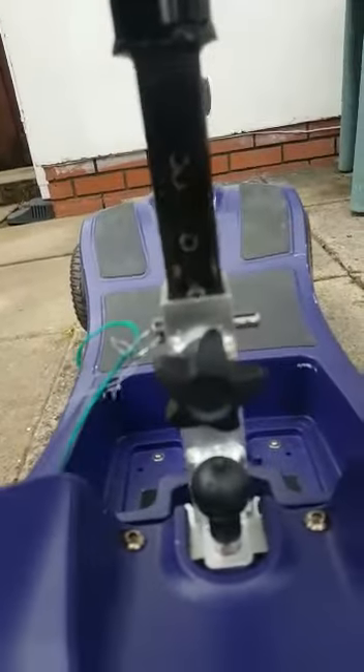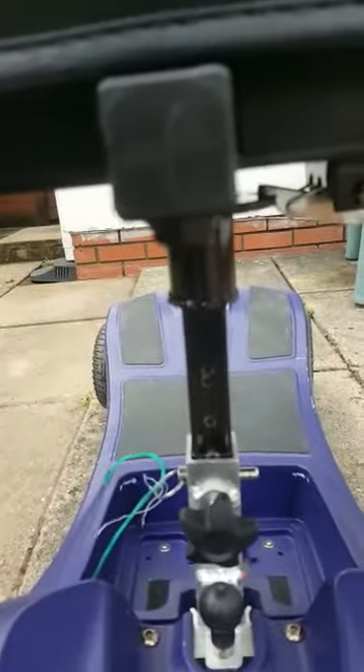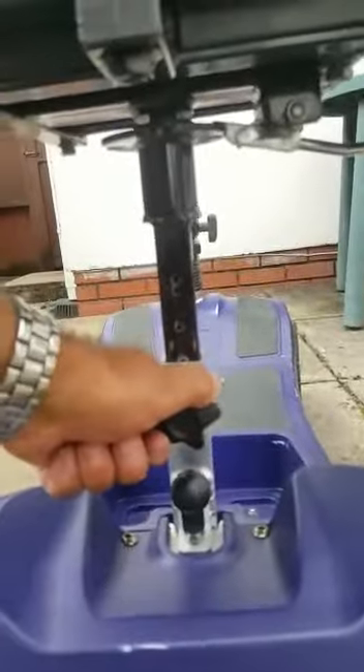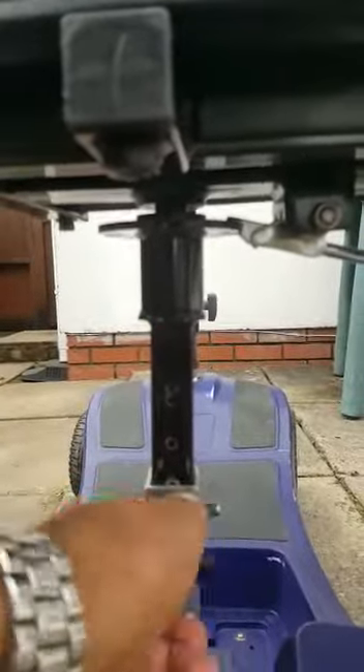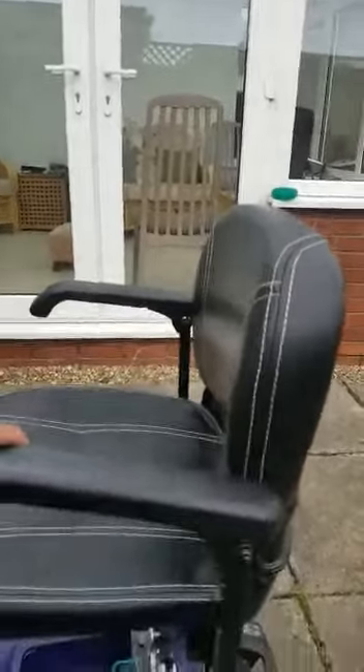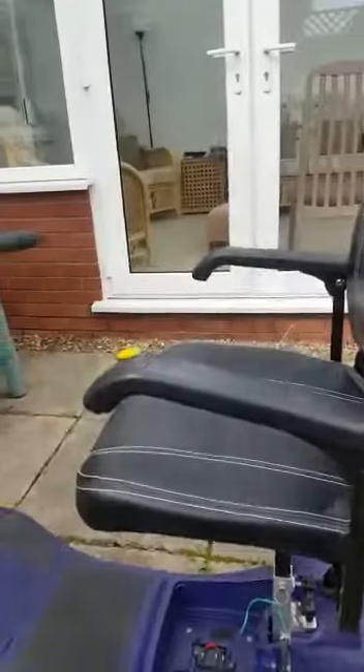You'll see these little knobs — they will self-loosen at will, including the main one which holds the seat together with the special pin that holds the seat at the correct height. What happens is when this one loosens even just a tiny amount, all of a sudden the seat drops back and forth, making for a very, very uncomfortable ride indeed.